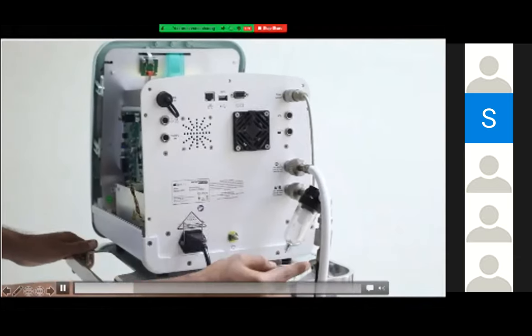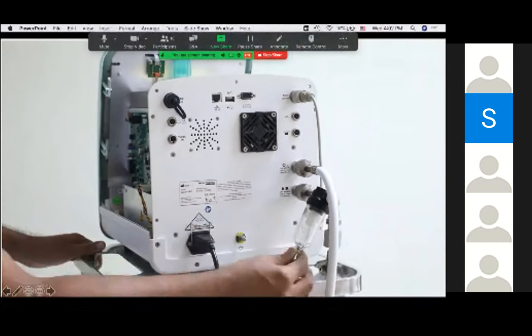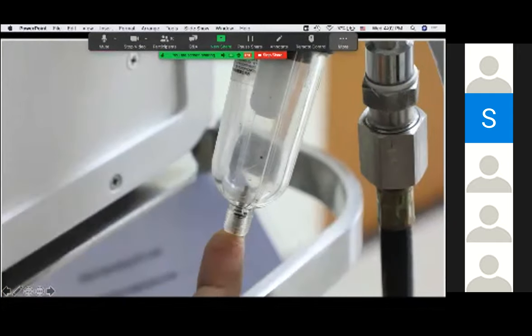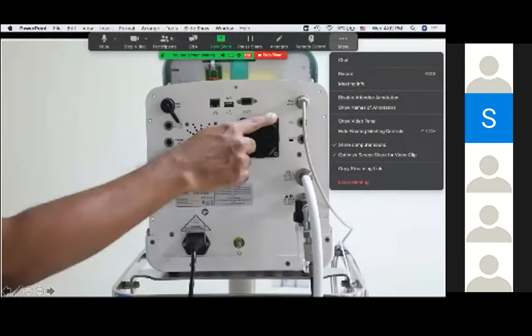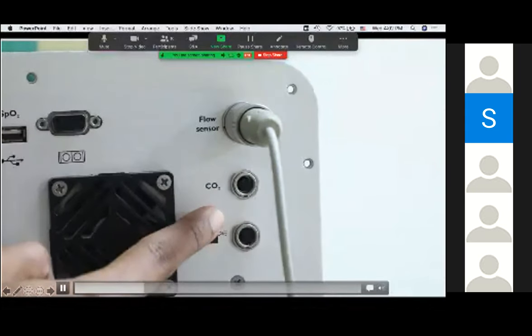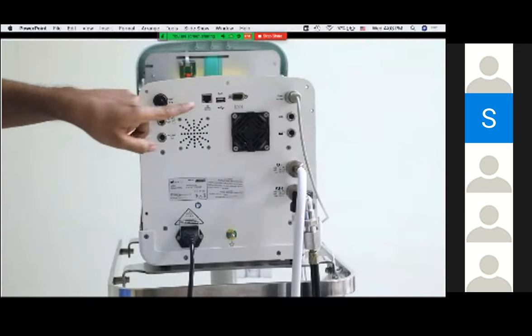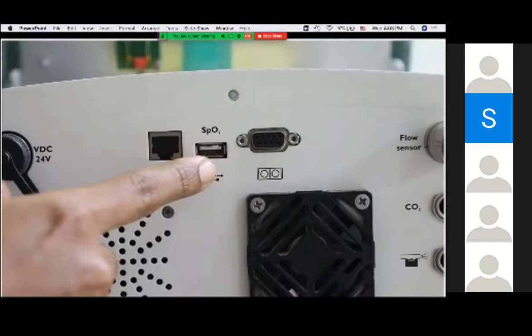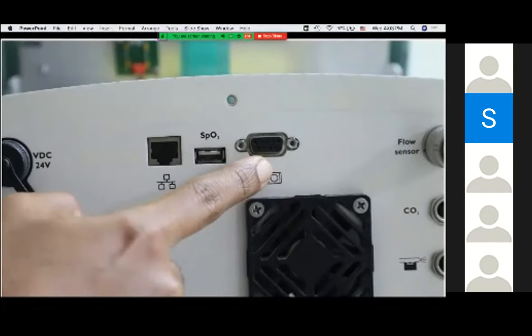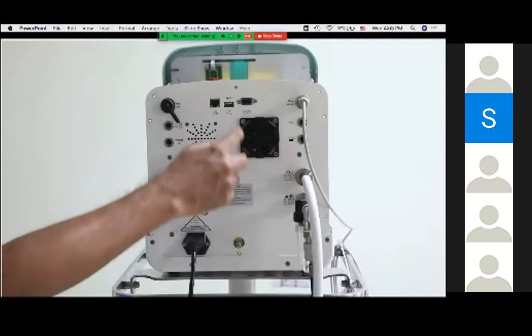Air enters the filter and water is trapped by the water trap. If you want to release accumulated water, you can press the screw. We also have a port for a flow sensor, a carbon dioxide sensor, an ultrasonic nebulizer port, ports for SpO2 sensor for feedback control, a VGA port, and a network port for data connectivity. There is also a fan and an alarm.